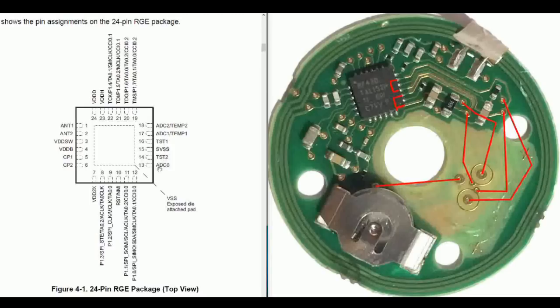The other ADC, ADC0, is connected through a resistor, and it goes out into the middle pad, which is one of the pads that connects to the electrode that goes into your body. The second pad from the electrode goes off underneath the board to this, up through this via, through a resistor, and then moves off to pin 16, which is TST.